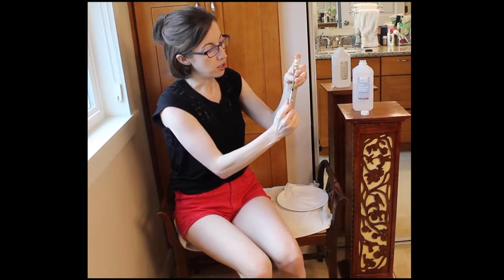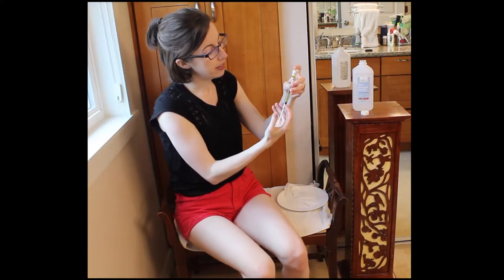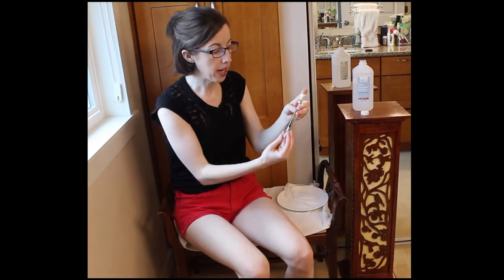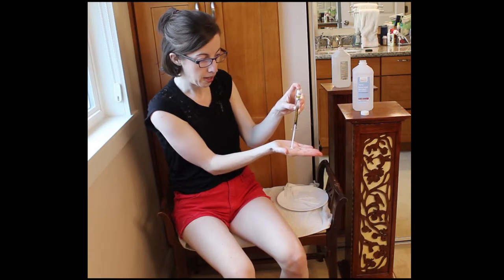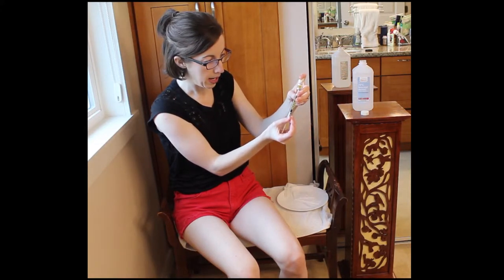Then you pull down — see how I'm pulling here, stabilizing with my thumb and pulling down with my other fingers. Since I can see there's some air in there, I push back up. Now, a lot of patients with rheumatoid arthritis, which is what I have, or osteoarthritis, or other forms of inflammatory arthritis like psoriatic arthritis, you might have thumb pain. So what I do for syringes is I try to not use my thumb when possible — I try to push up from my palm. See here, I'm pushing up to get it up to 0.8. Instead of going like this — that's the more painful way. This is the less painful way for my thumb. So I get it back up to 0.8 because that's my goal.